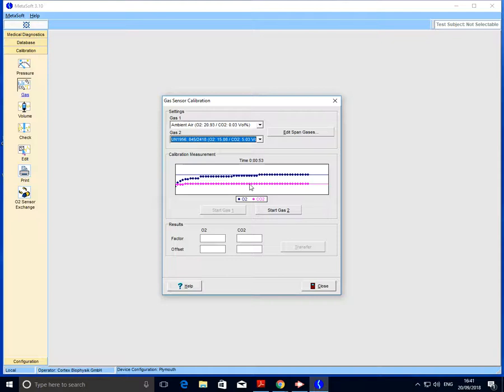Gas one's now complete. We can go ahead and attach the sample line into the end of the tubing on the demand regulator, and we can go ahead and start gas two.